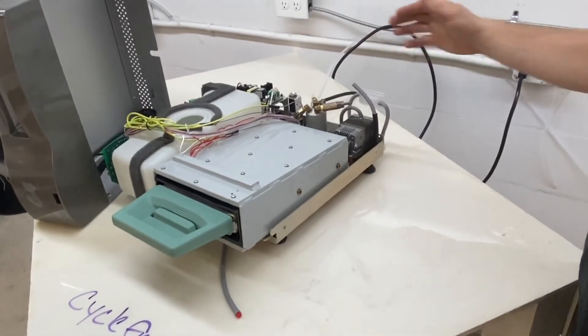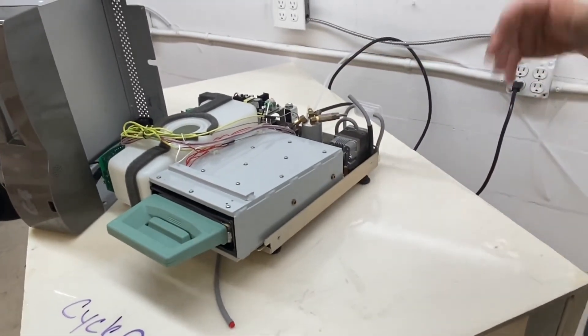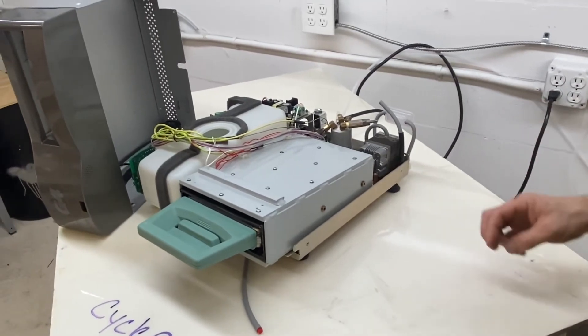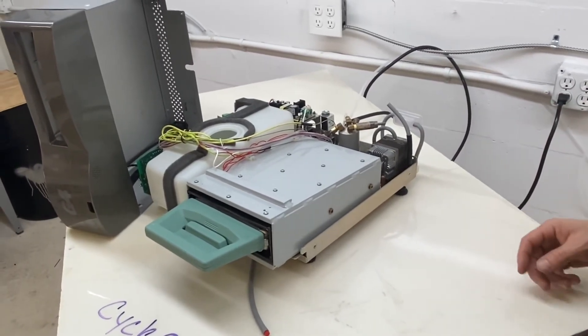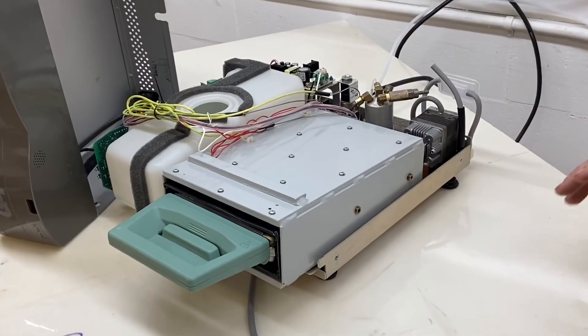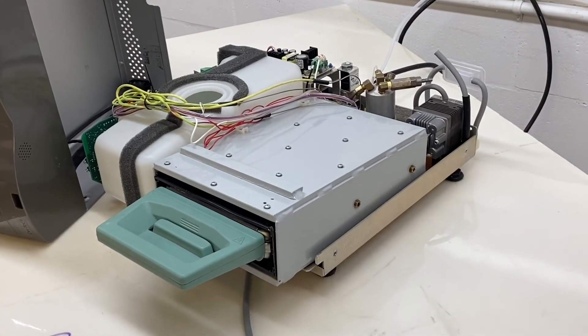If there is something stuck in this solenoid, give us a call. We can help you. 704-966-1650, option three. Over now.